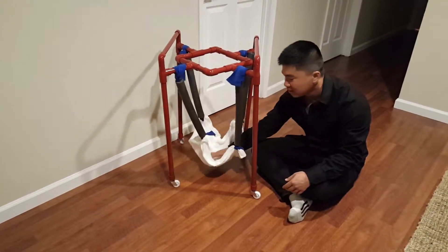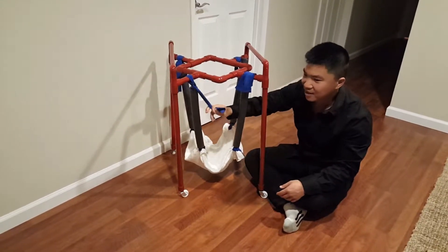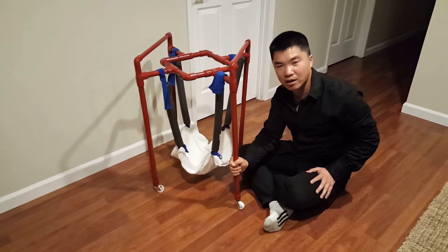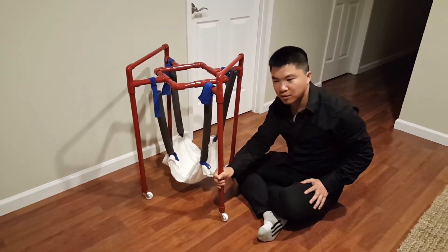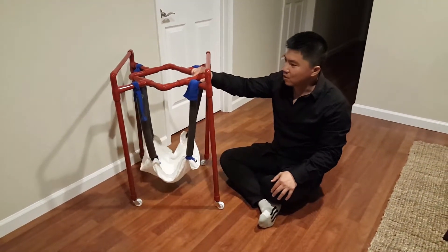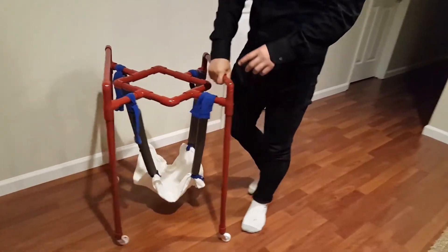This thing is kind of low — I just finished this maybe a few minutes ago, so this is something I need to readjust. I also plan to drill a hole here to hide the tie parts. As you could see earlier, my niece was on it — she's already able to crawl — but some of the applications could be applied to cases like Craig, who has a problem with the push-up position, or Angela. I know parents mentioned they want their baby to start walking, but before walking they need to know how to crawl. Overall, that's my equipment project and I hope you guys like it.